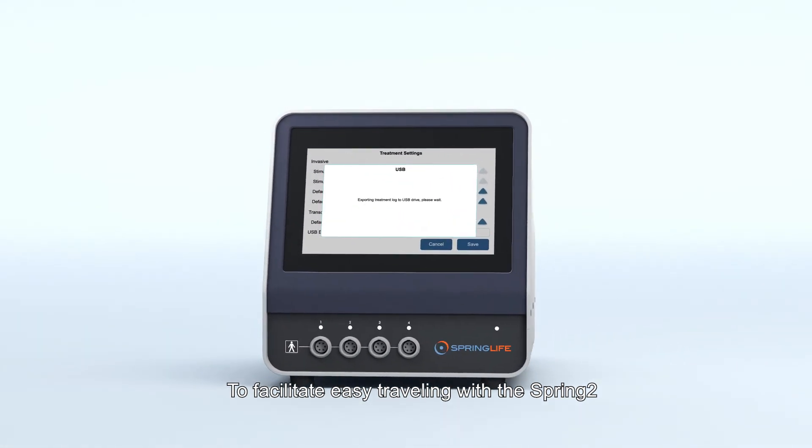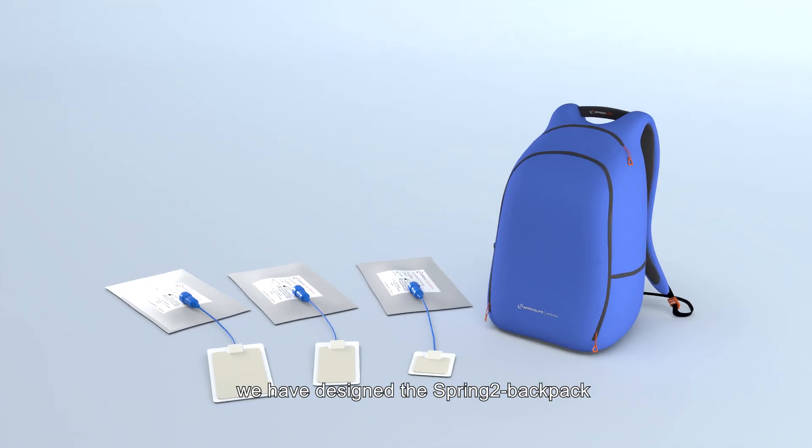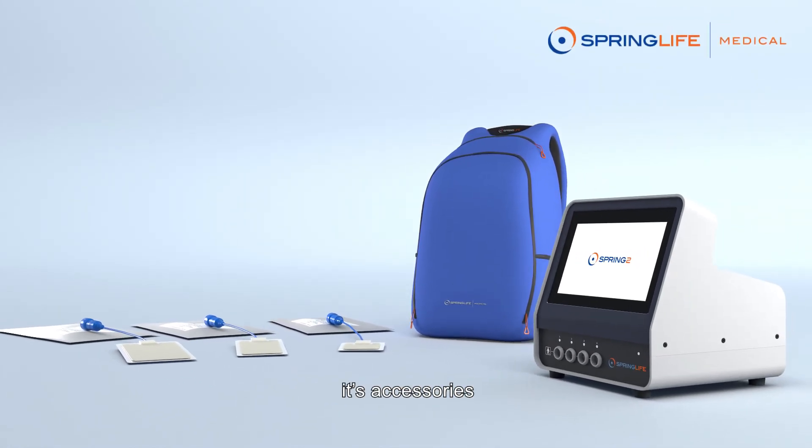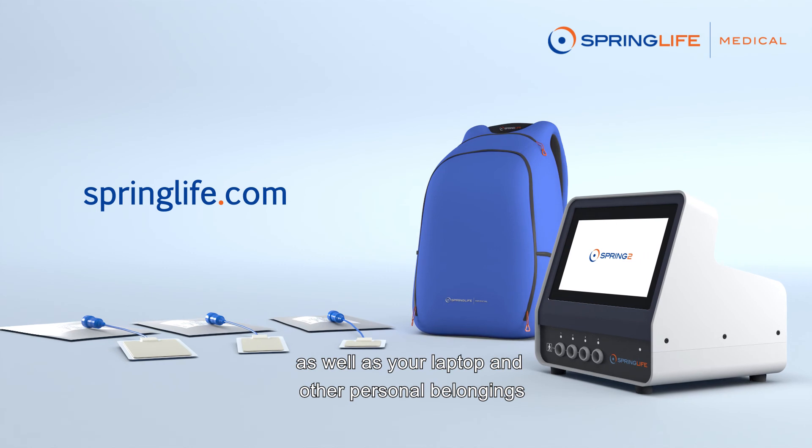To facilitate easy traveling with the Spring 2, we have designed the Spring 2 backpack. It perfectly fits the Spring 2, its accessories, as well as your laptop and other personal belongings.